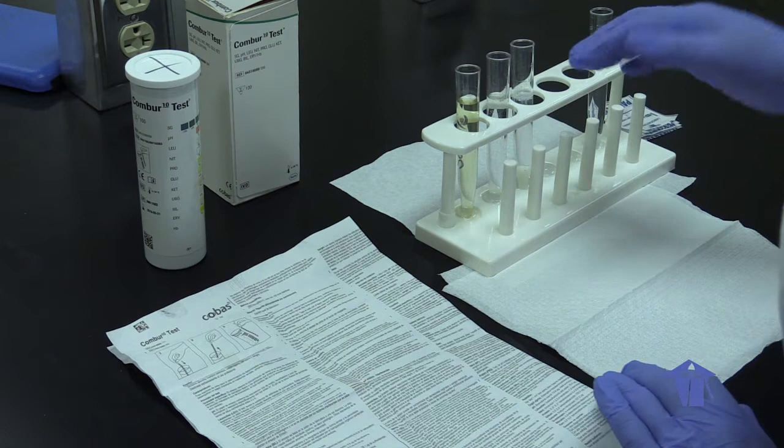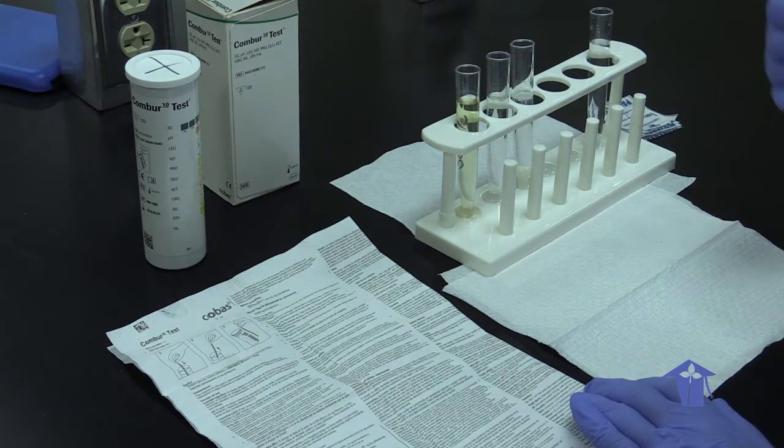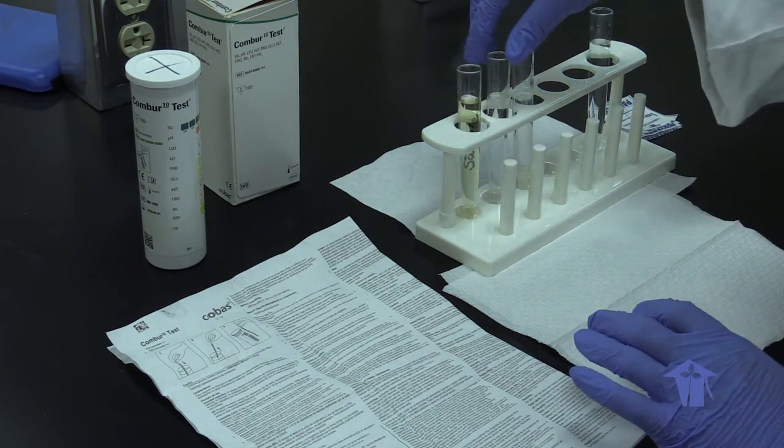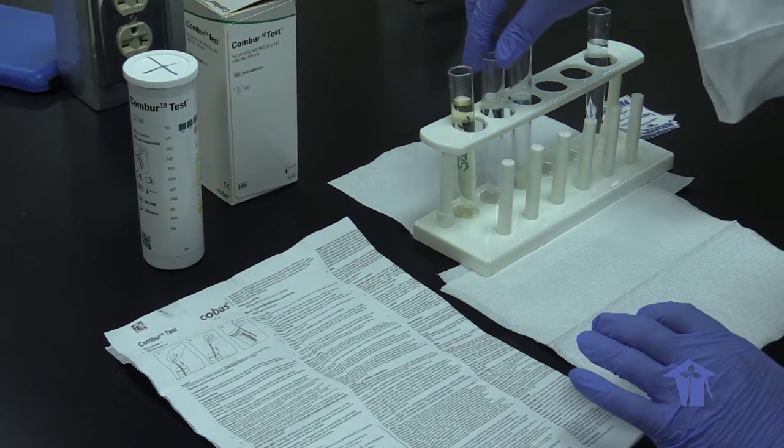So, I will be demonstrating the procedure for doing the urine dipstick. So these are your urines and we will start.